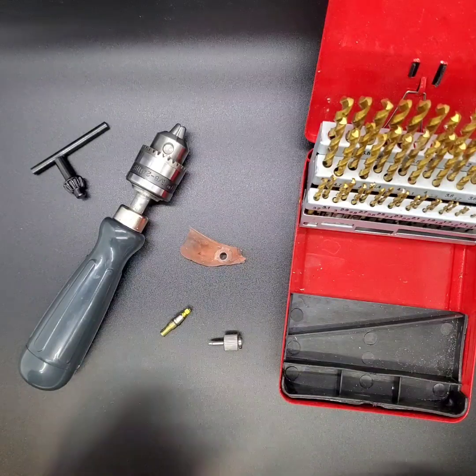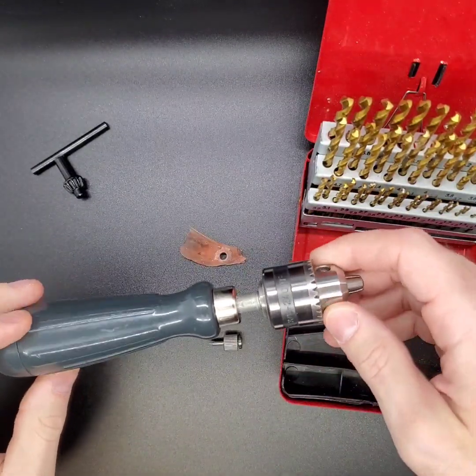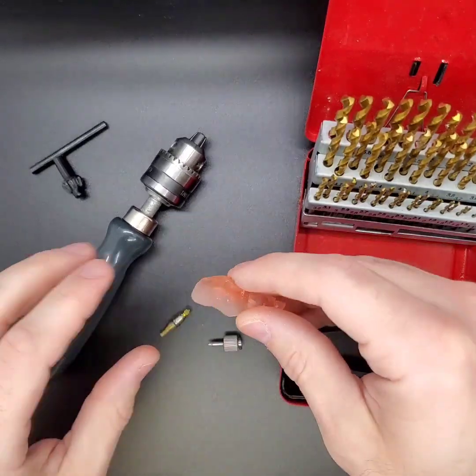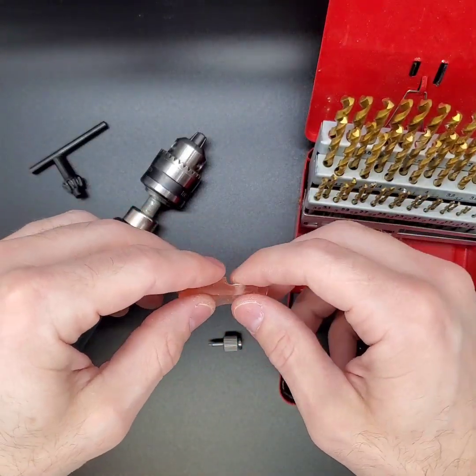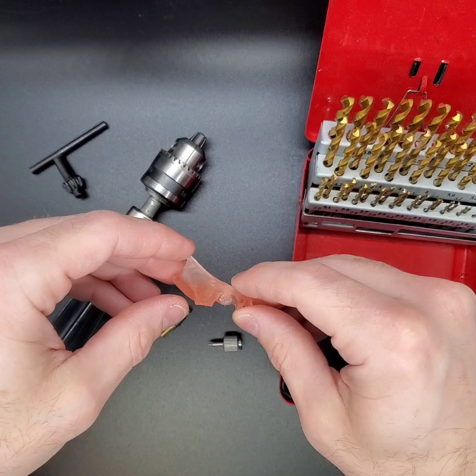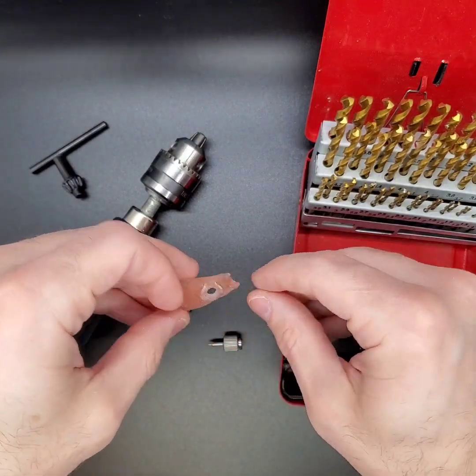Here it is — this is what I like so much about this new tool. This was a $12.99 purchase on Amazon. When we're printing surgical guides, sometimes we encounter a situation where we're using a different guided kit, maybe replacing fixation pins, maybe someone else printed your guide for you, and you find that when you go to insert a sleeve or your drills, it's too tight.